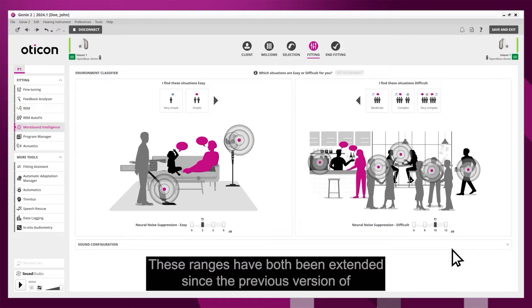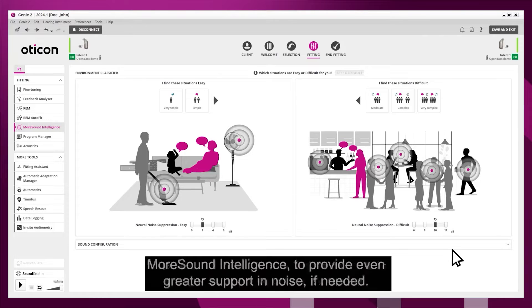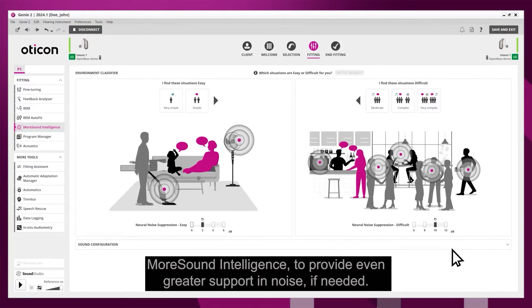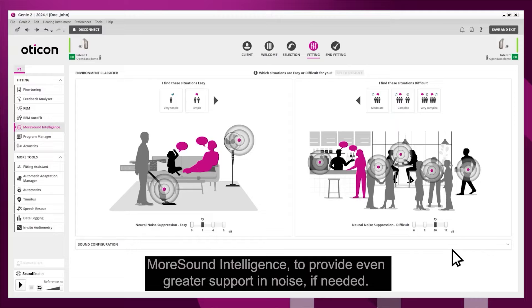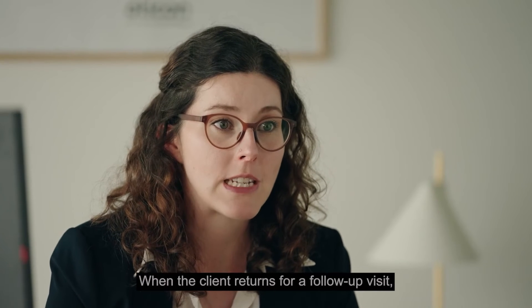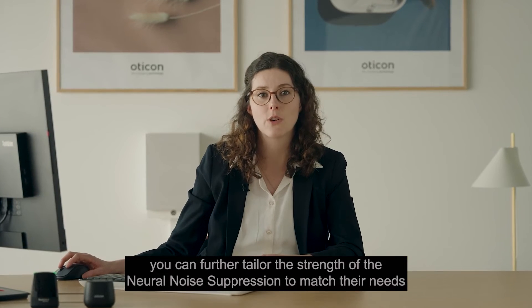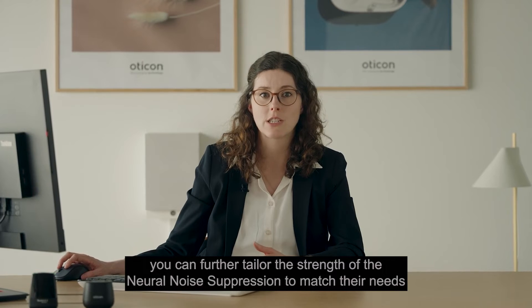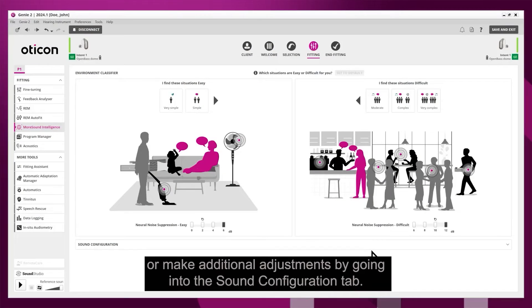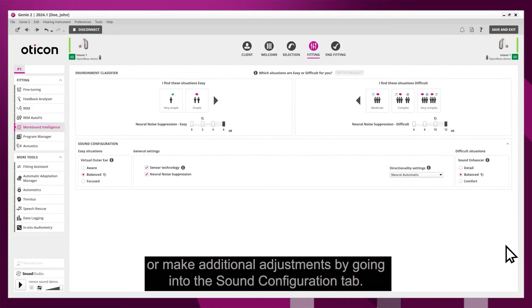These ranges have both been extended since the previous version of Moresound Intelligence to provide even greater support in noise if needed. When the client returns for a follow-up visit, you can further tailor the strength of the neural noise suppression to match their needs, or make additional adjustments by going into the sound configuration tab.